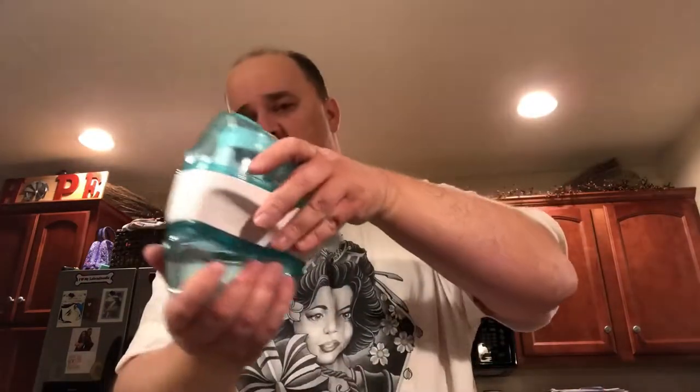Here we go guys, very close to the end. I always want to make sure you blow your nose afterwards. Like I said, not the prettiest thing in the world, but that's how it works. You feel refreshed. It can take a little while to go through your sinus cavity — you're going to hear the motor going, and once it stops, you know it's over. And basically, here it is — this is how you take it apart.